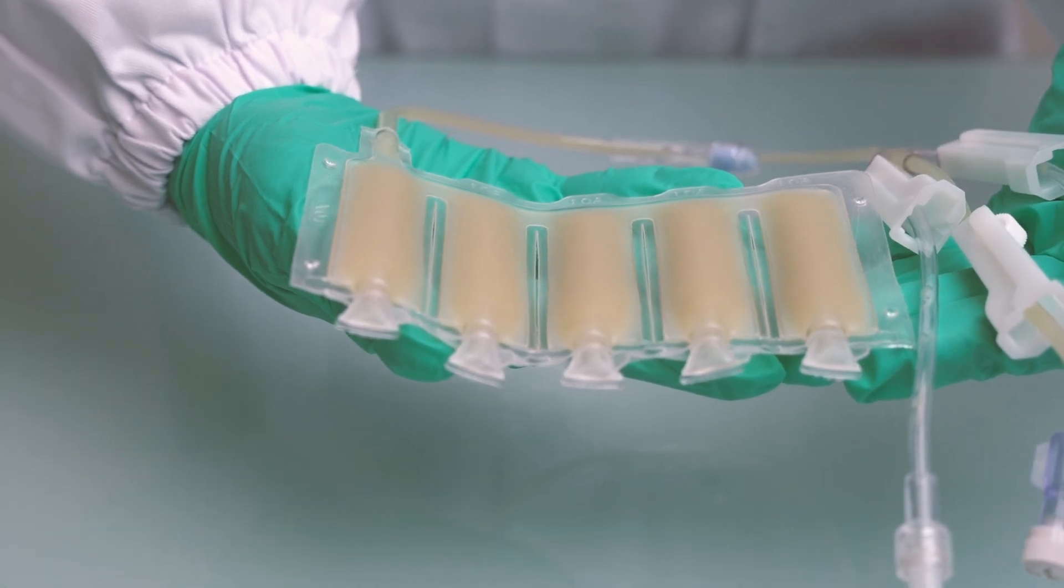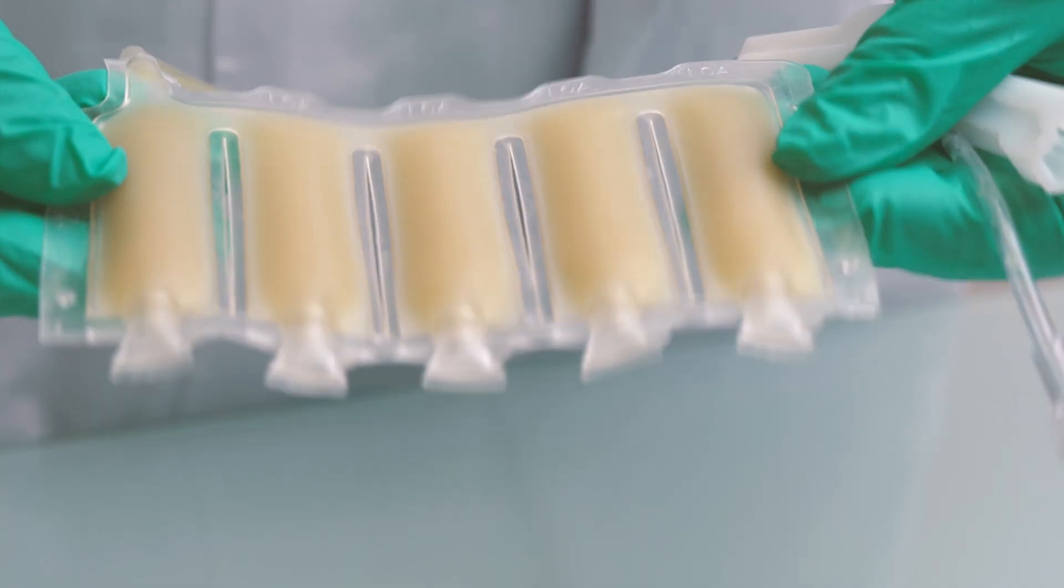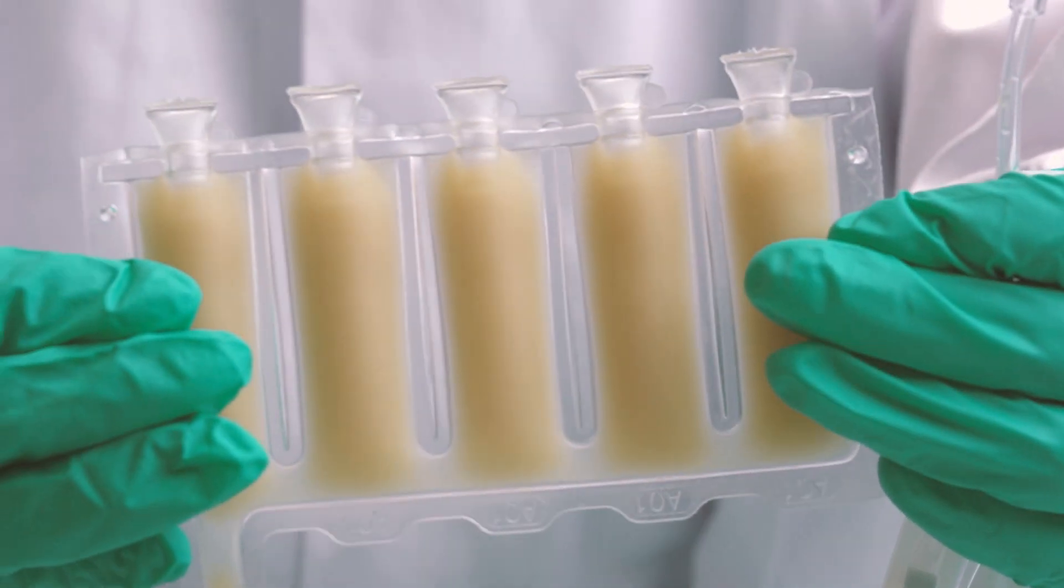The Origin Biomedical CryoStore FlexBag is indicated for freezing blood components and offers a range of benefits that enhance flexibility and efficiency.